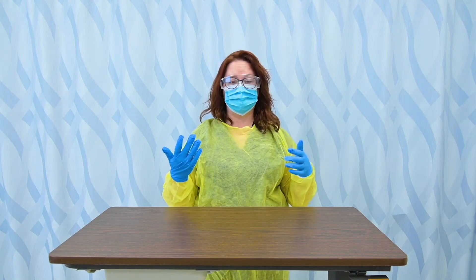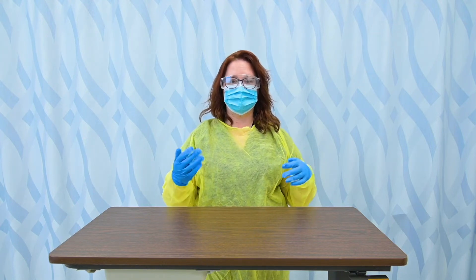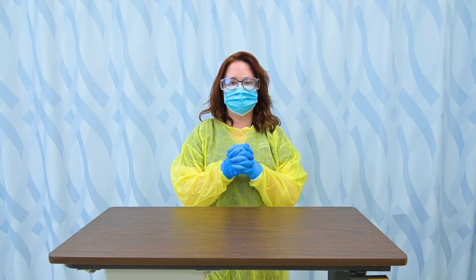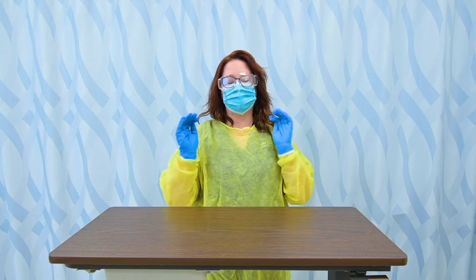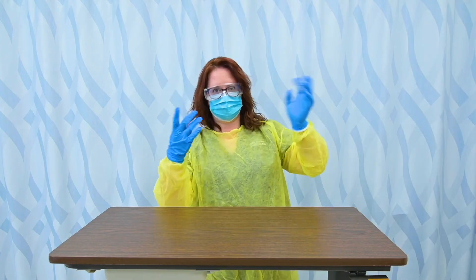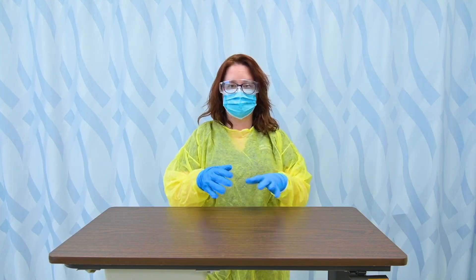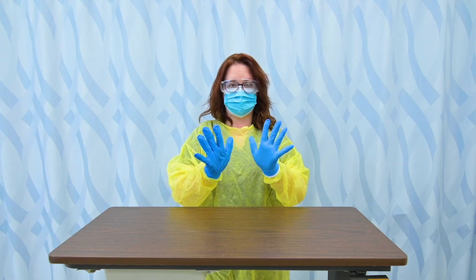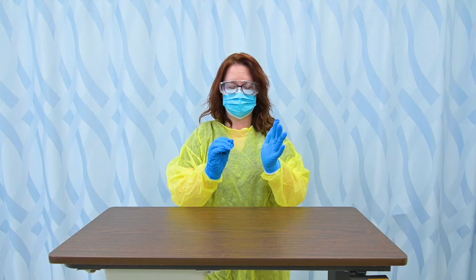So that's how I don or put on my PPE. To remove my PPE, I start with my gloves, and this is really key to think about while I'm doing this — these are dirty. That's hard to remember sometimes in lab because usually you put it on and take it off repeatedly. But in real life, I have touched something that's contaminated or been in a patient's room that's on precautions, so my hands are dirty and I need to be careful when I take them off.